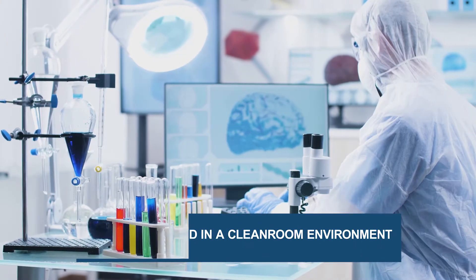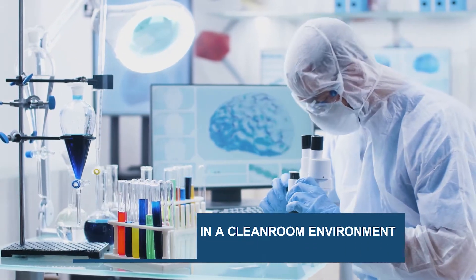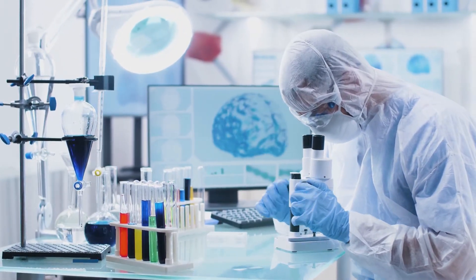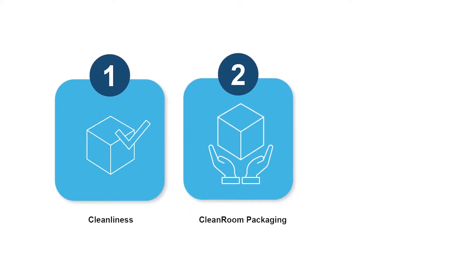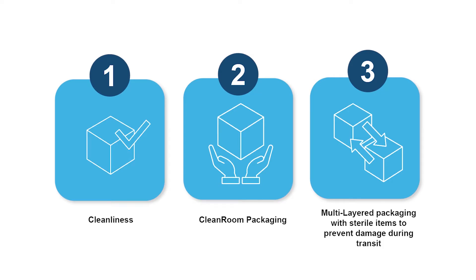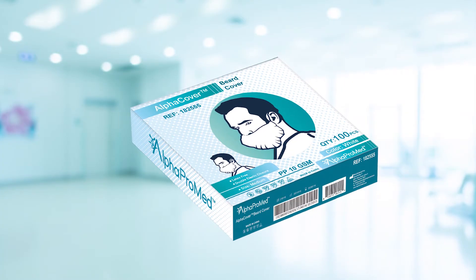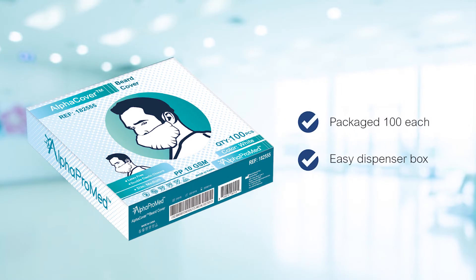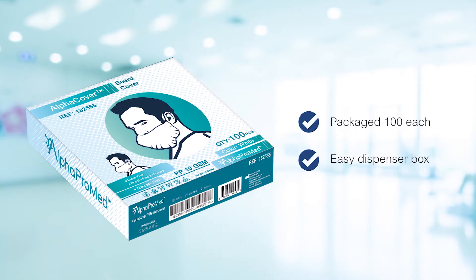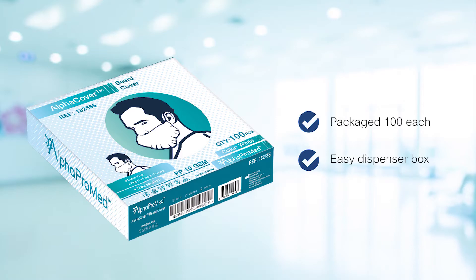Alpha Cover beard covers are manufactured in a clean room environment and packaged with the Alpha Pack method to uphold packaging integrity, cleanliness, and efficiency. Alpha Cover beard covers can package 100 each in an easy die-cut dispenser box for maximum storage, facility, and reusable packaging.